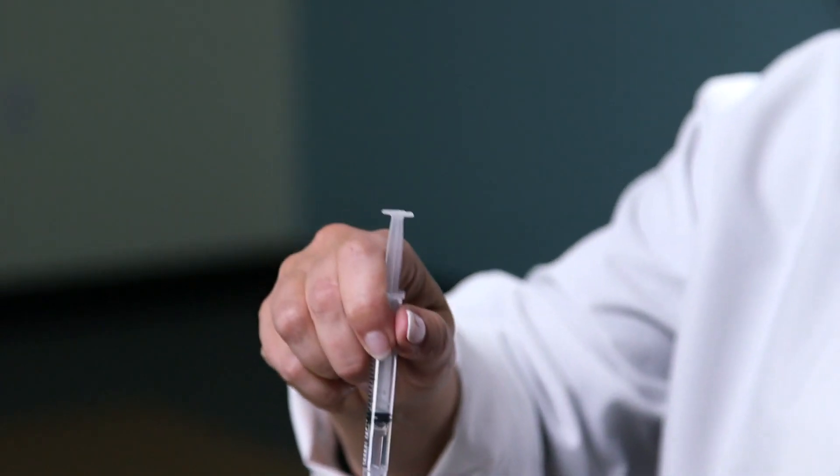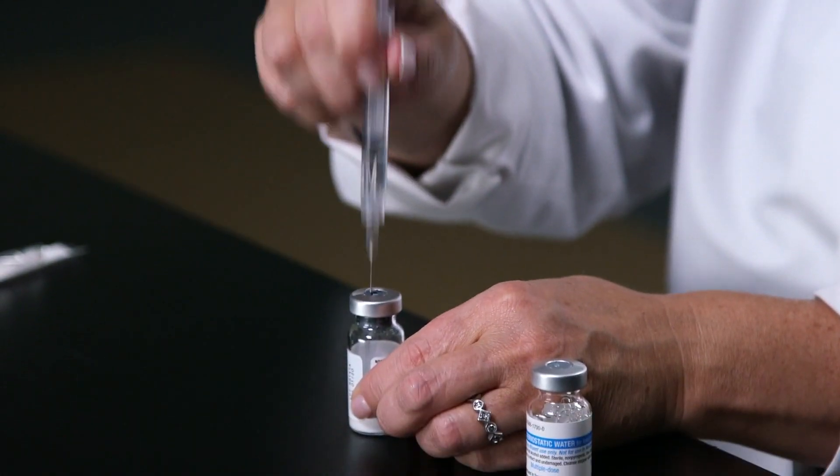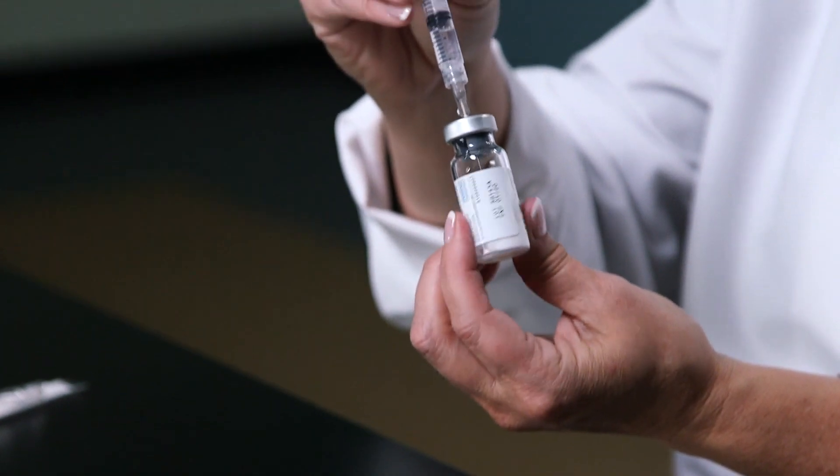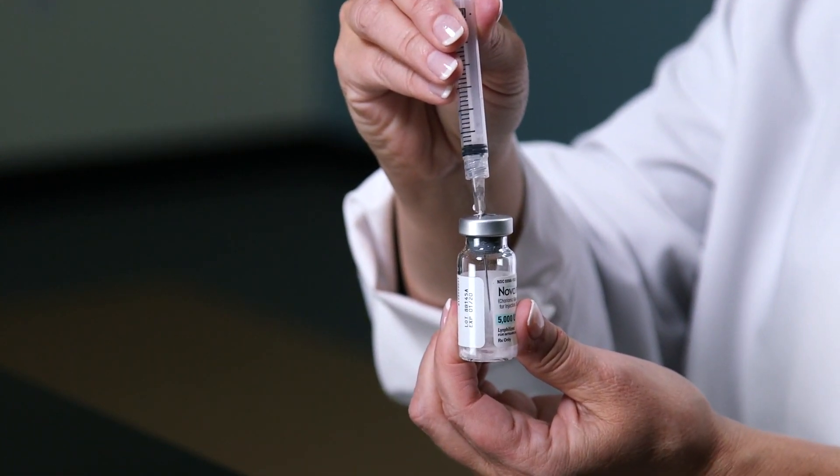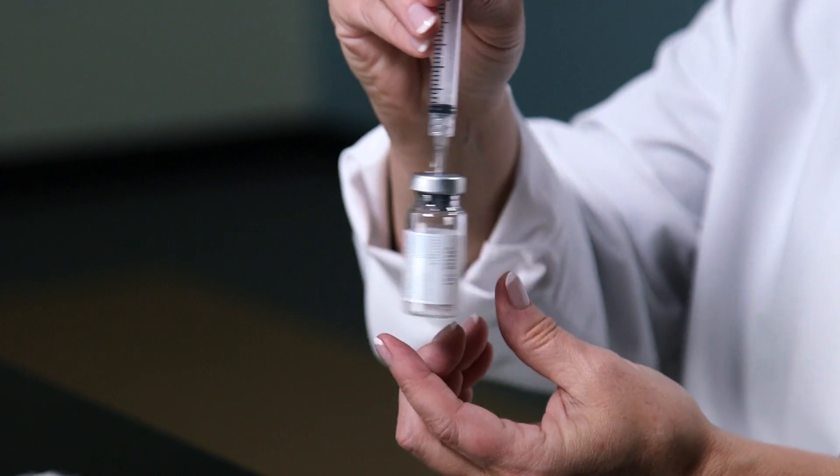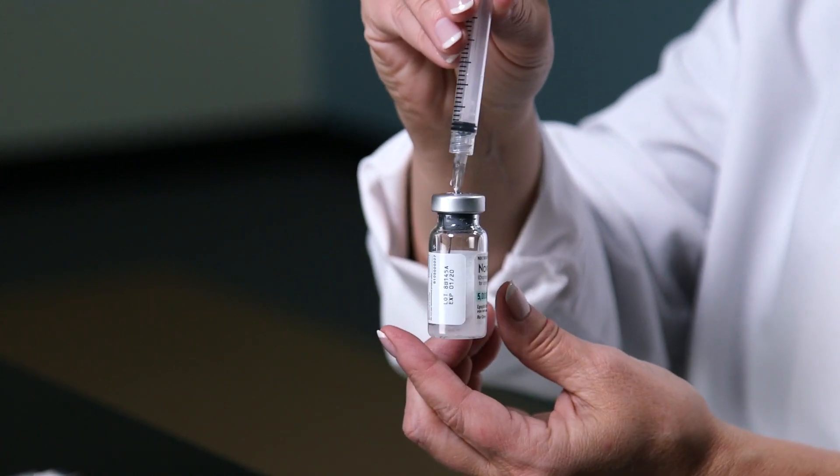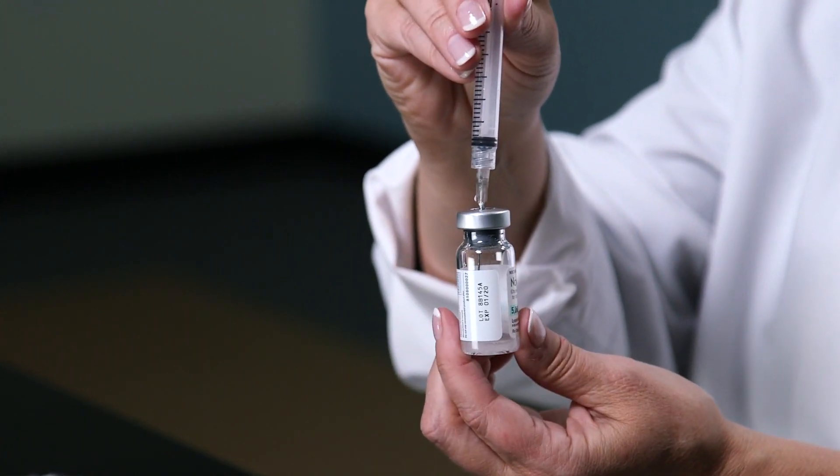You're then going to take that water and inject it into the powder, the Novarel powder medication. Inject the water slowly. It will dissolve almost instantly. A little swirl, but don't shake.